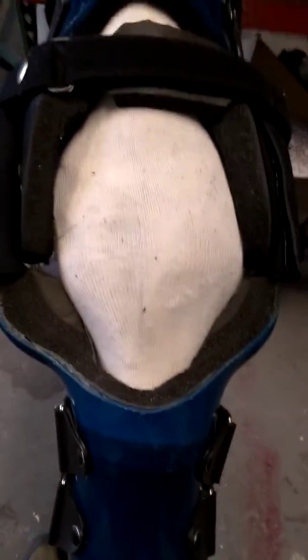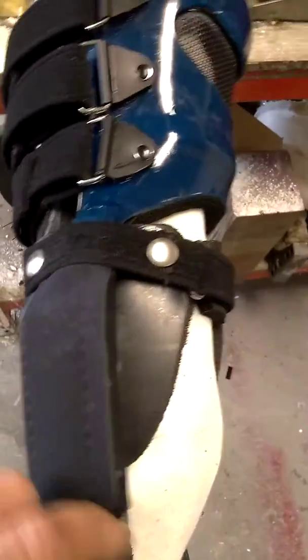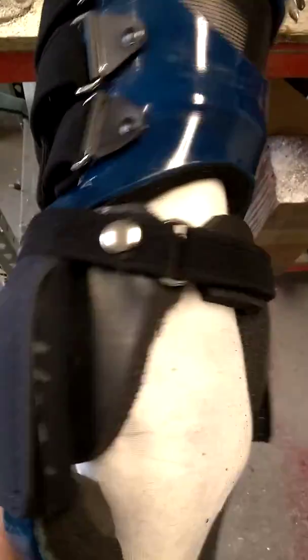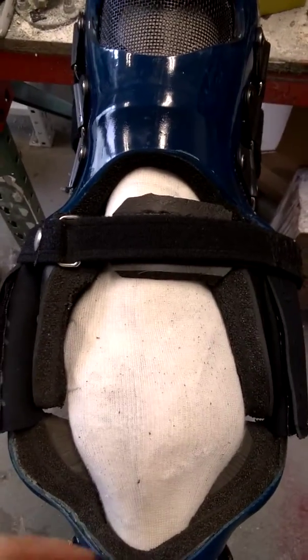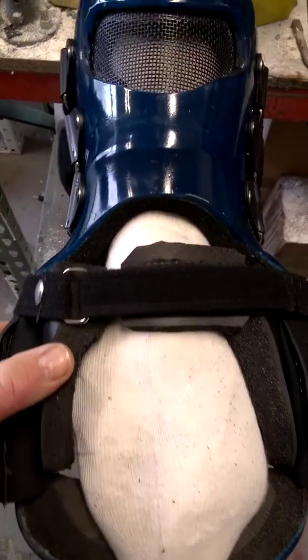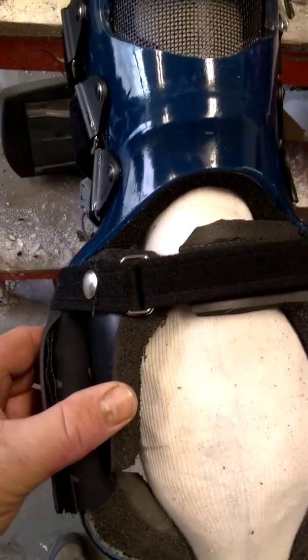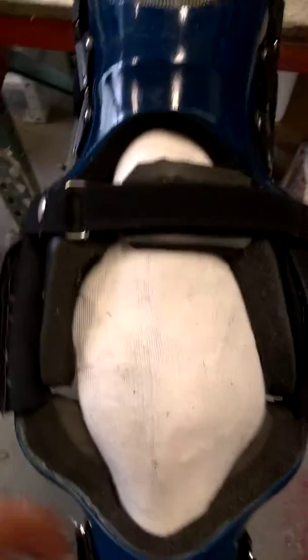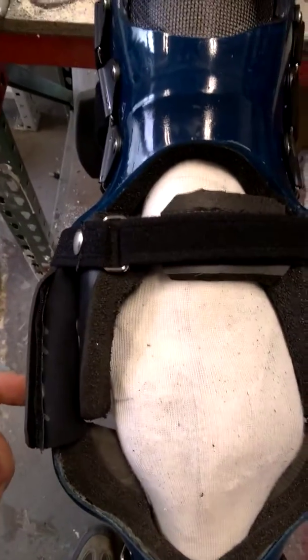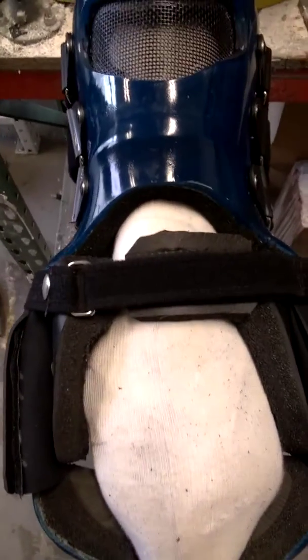One of the features of our brace is the condylar suspensory system. This system helps stabilize any medial or lateral movement at the knee. These suspensory pads, which capture each side of the knee, move independently on their own axis versus the axis of the brace hinge, so it eliminates any binding.